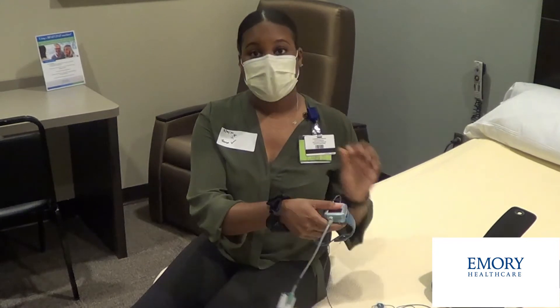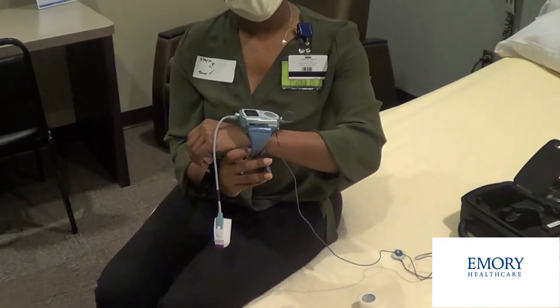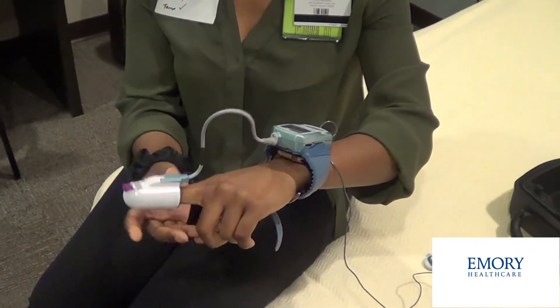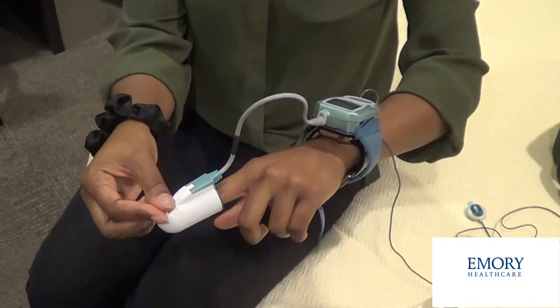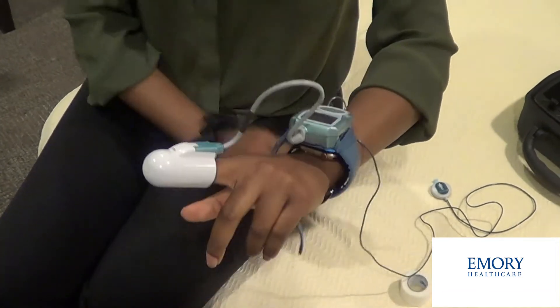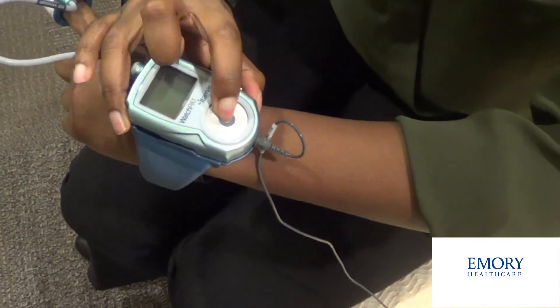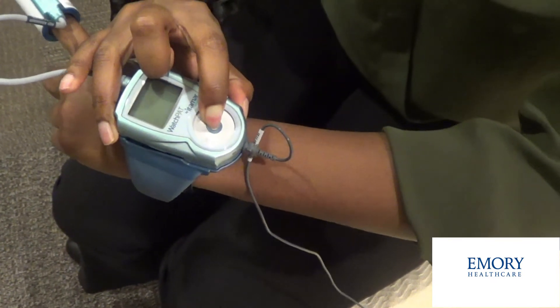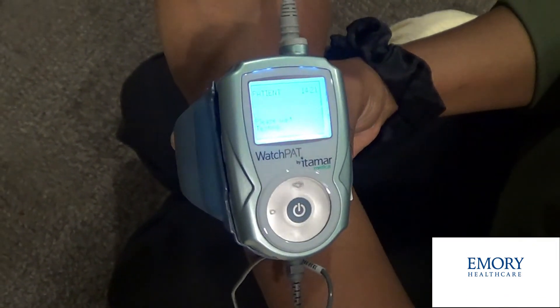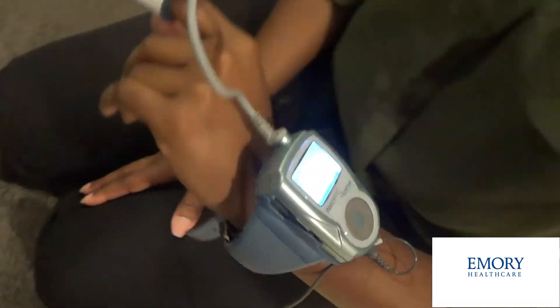It's going to expose the sticky side. You're going to place it on your sternum — that flat bone in the center of your chest — and press firmly, and then you'll reinforce it with the tape provided to secure it throughout the night. You'll place the device itself on your non-dominant hand, similar to how you would wear a watch. Adjust it to whatever is comfortable for you. Place your index finger of that same hand into the probe as far down as it goes, and then you'll pull this purple tab that says 'top' all the way off. Once you've done so, you'll turn the machine on by pressing the power button until the screen lights up. It's going to say Itamar Medical, and then it'll say patient, please wait testing. Once the screen has completed, the test will say good night and you are good to go to sleep.